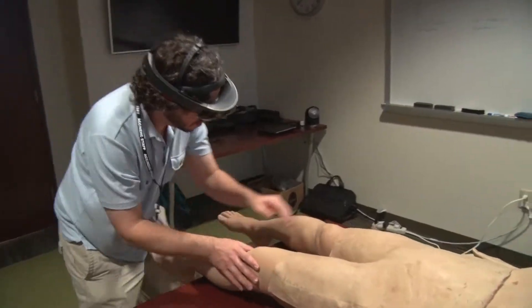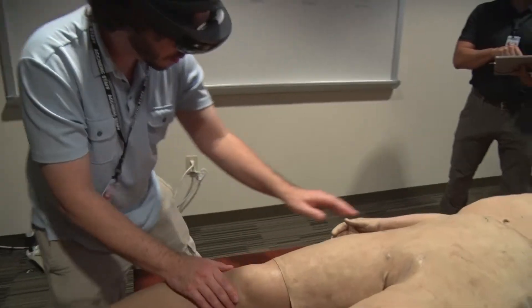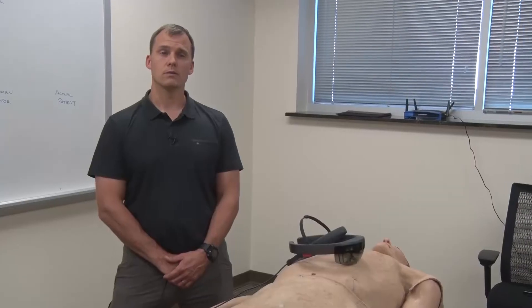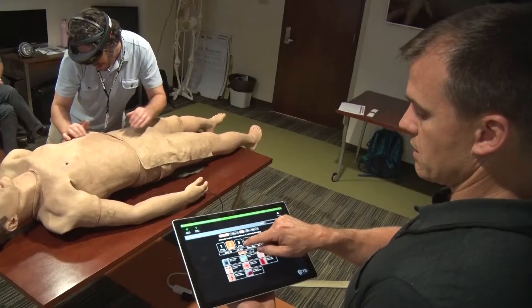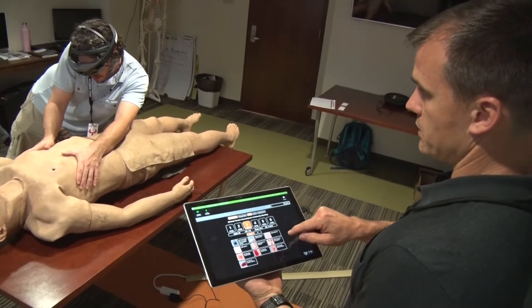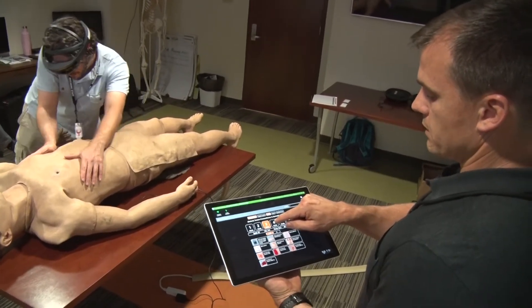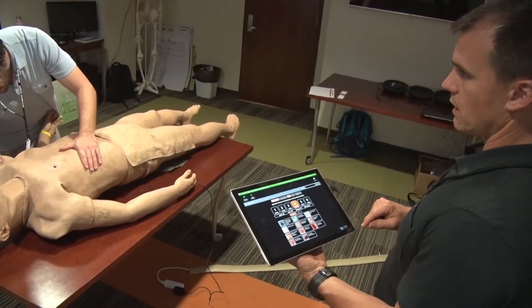What we did is we took emerging technology and created a patient that could lay over the top of a mannequin, present cues in high-fidelity, and a coaching and instructional system that guides students through the learning process.